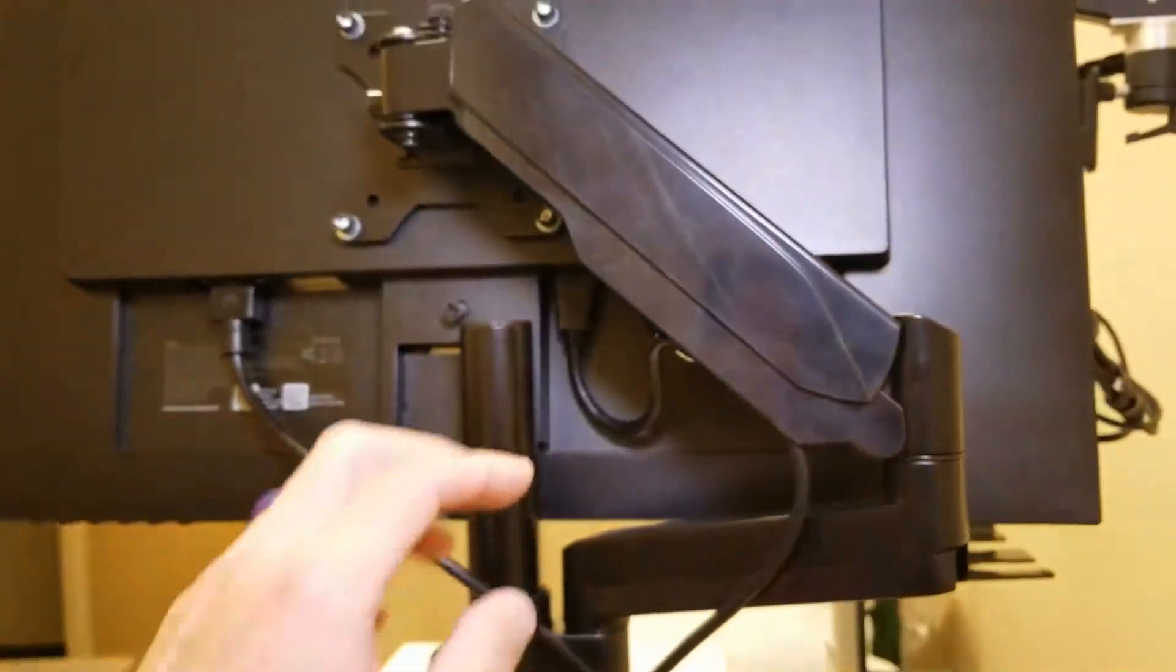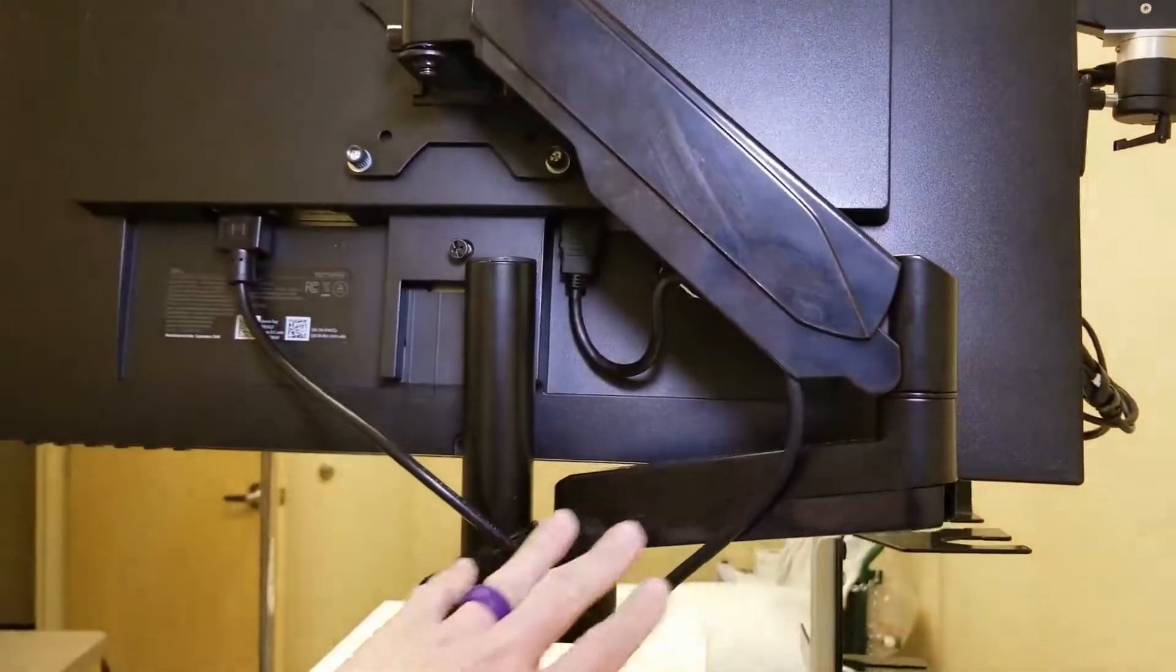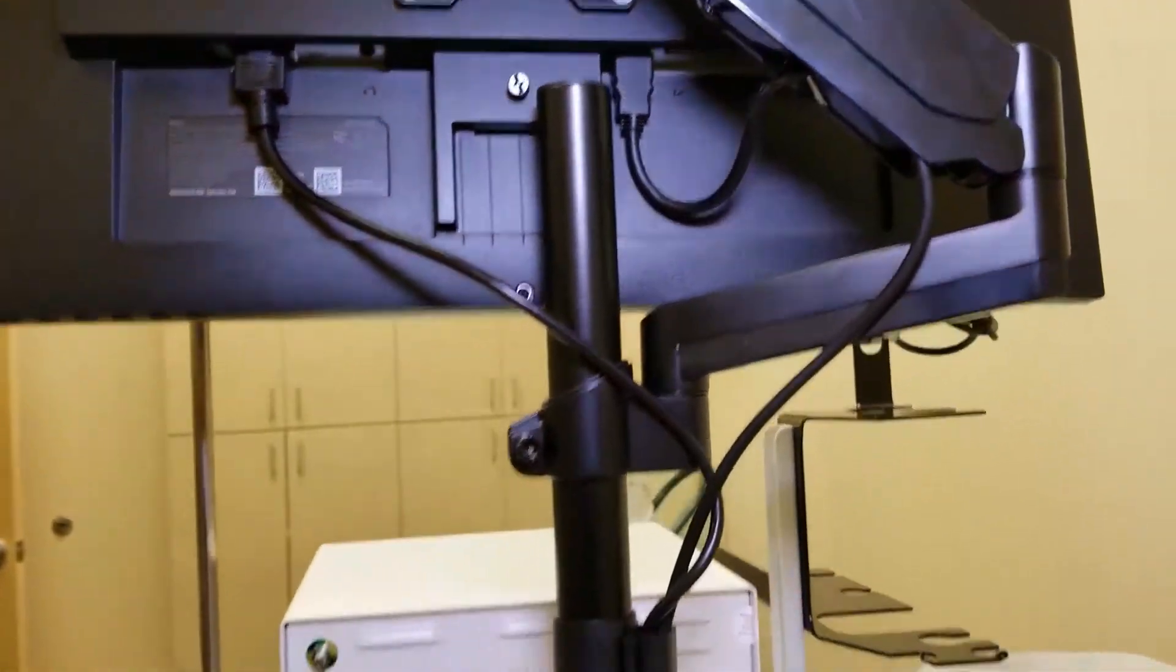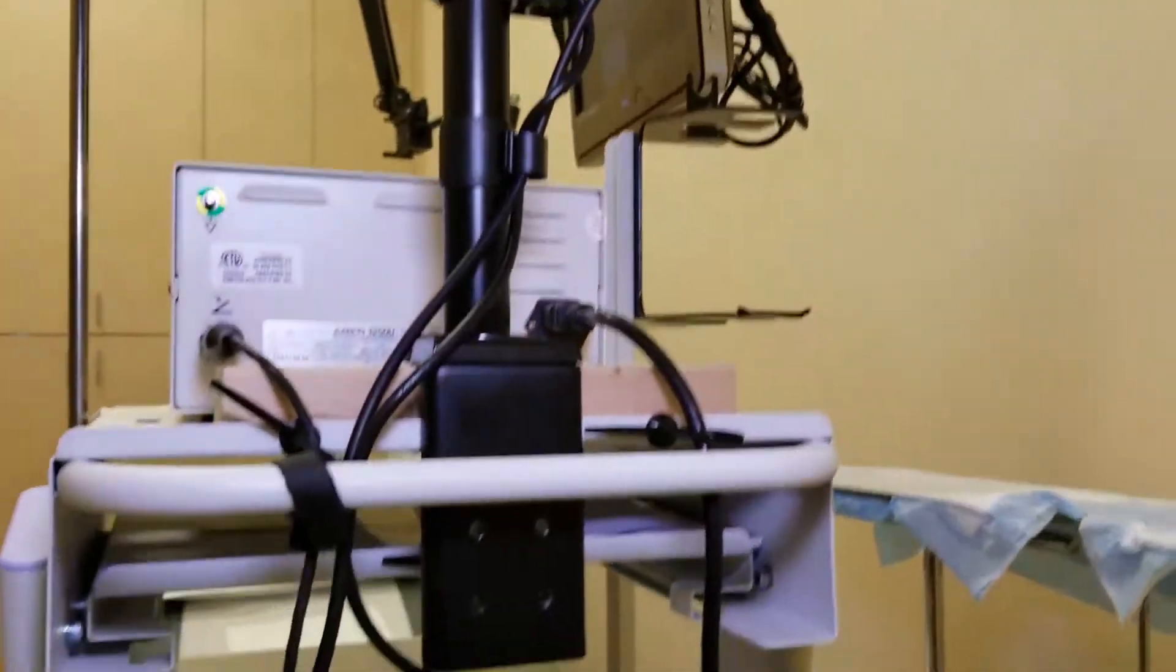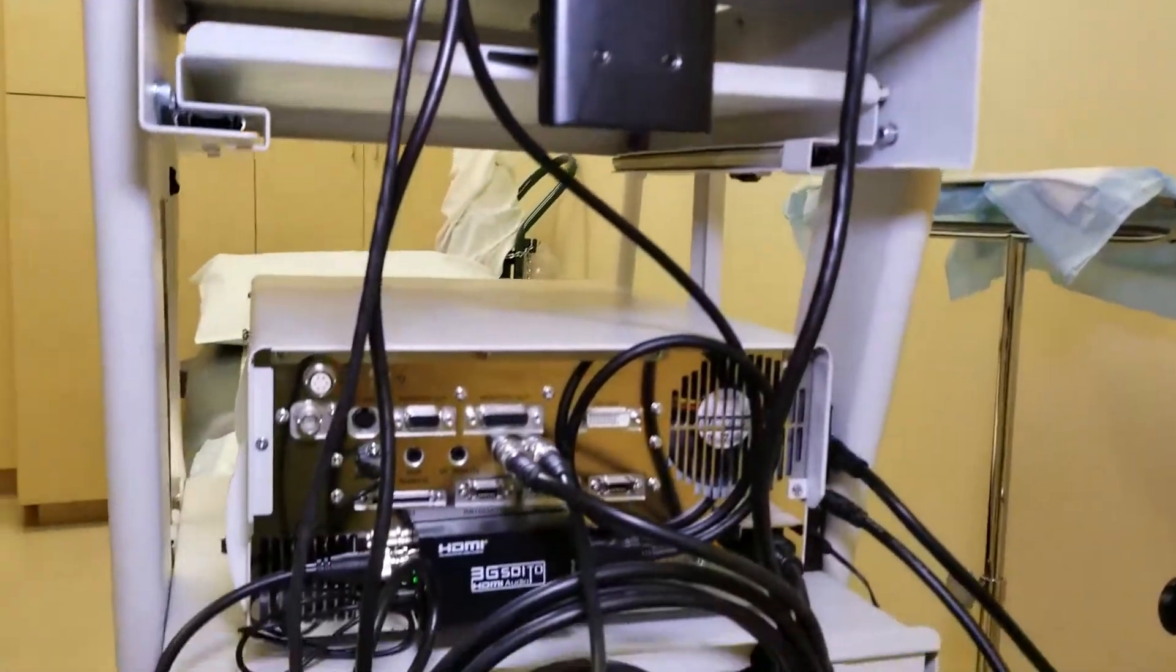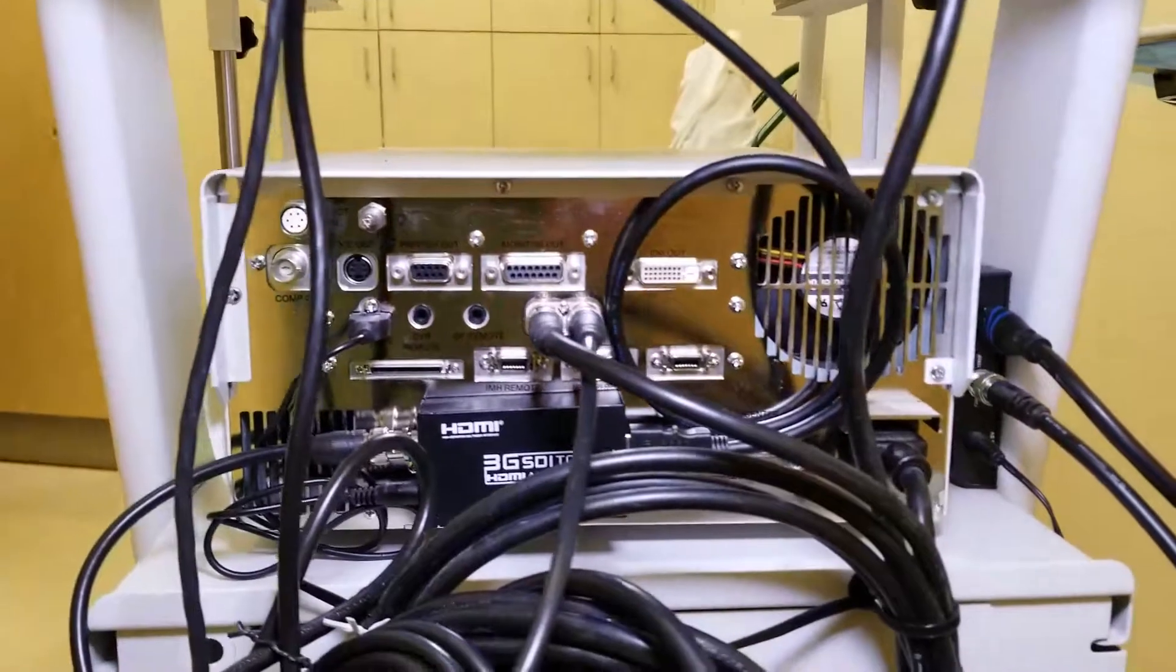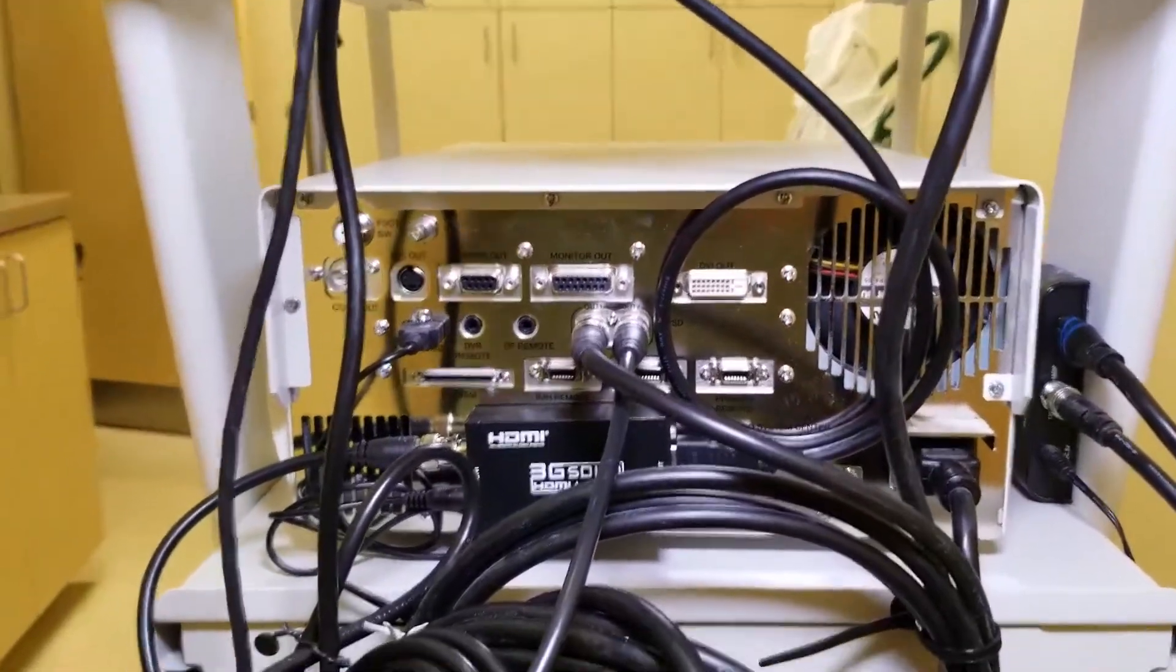This monitor is mounted on an adjustable boom arm. I will put everything that I showed in the video description below so that you can easily find the items that you need to make all this happen.